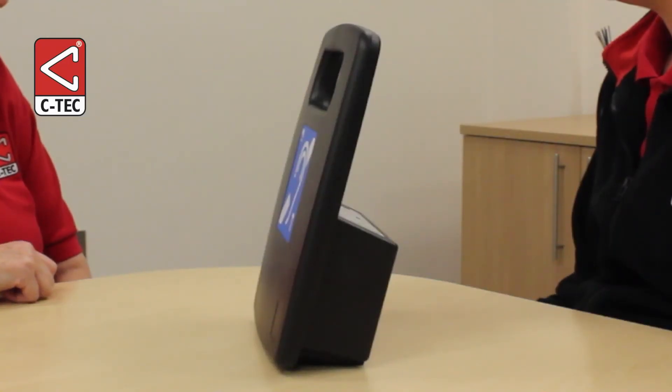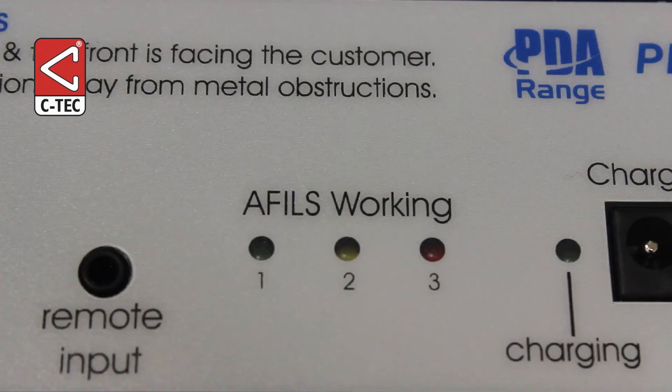The amplifier's on time commences the moment the on/off button is released. Ten seconds before the end of the session, a beep will sound to indicate shutoff is imminent. To extend the session by a further period, simply press the on/off button again.